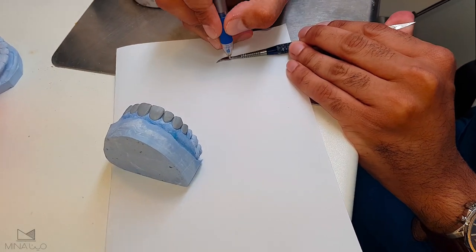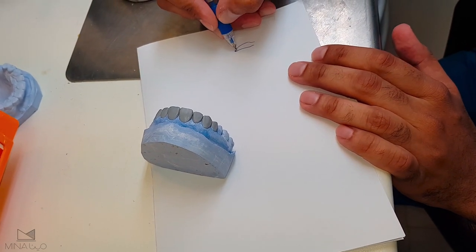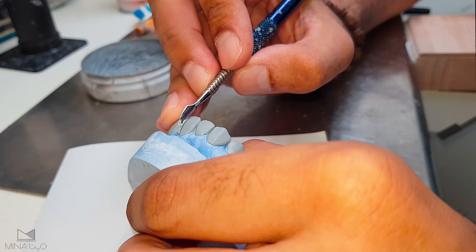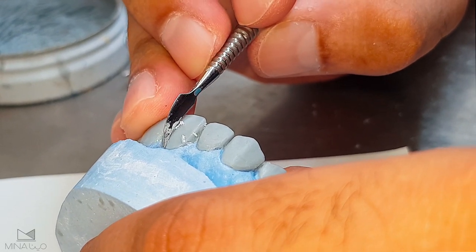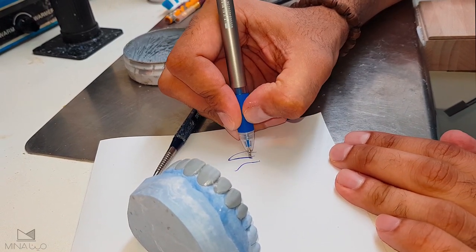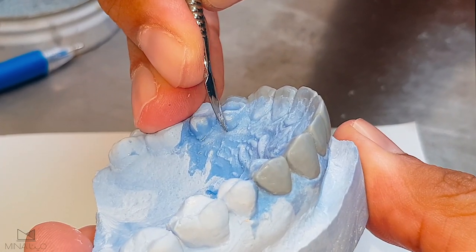If I draw this instrument — imagine this is the tip, and if you continue the surface here, this is the inner surface that I'm using to carve. When I move my instrument to remove wax like this, I'm actually shaping the labial surface. That's why they designed this instrument from the beginning to have this shape — you are literally modifying the shape of the tooth. I can also use this to confine the shape of the palatal part.